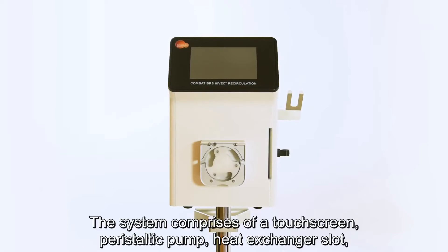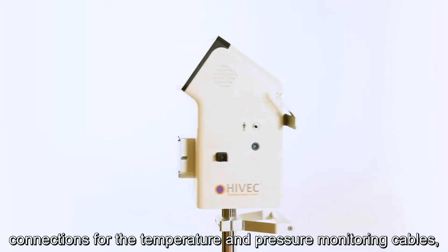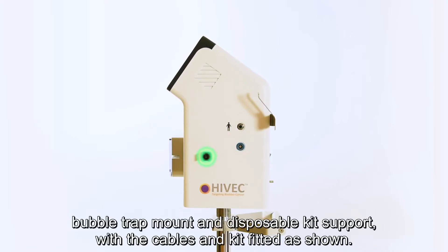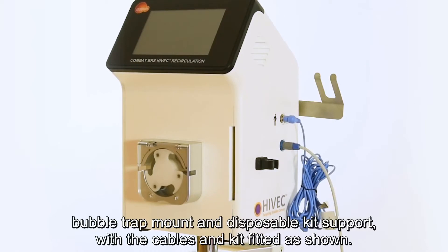The system comprises of a touchscreen, peristaltic pump, heat exchanger slot, connections for the temperature and pressure monitoring cables, bubble trap mount and disposable kit support with the cables and kit fitted as shown.